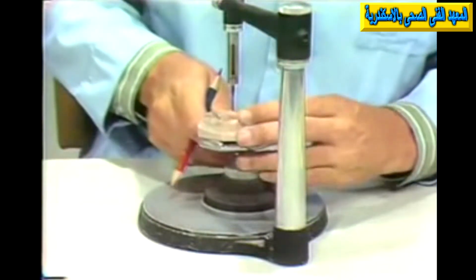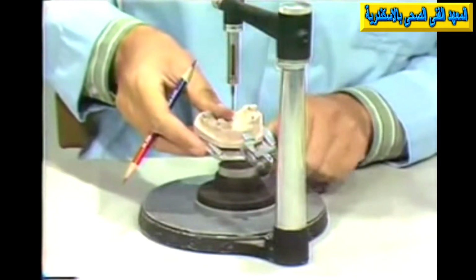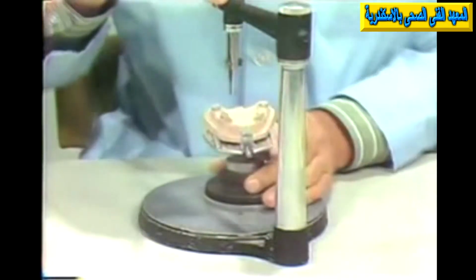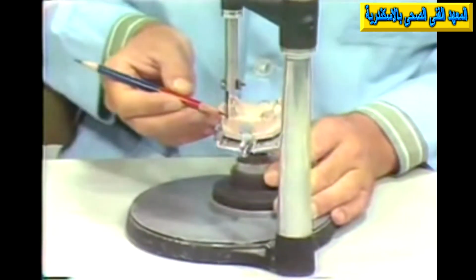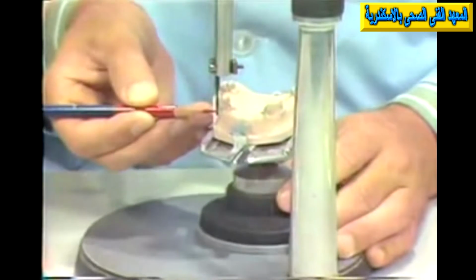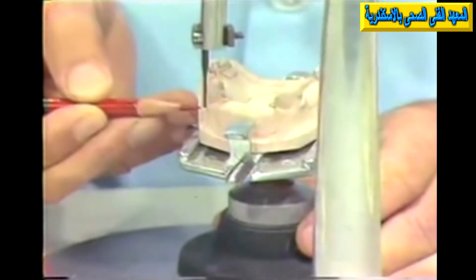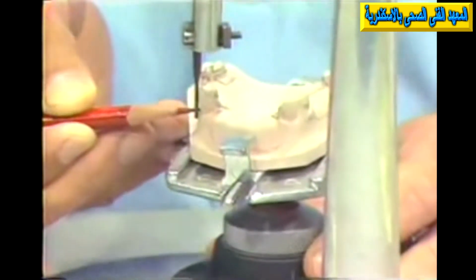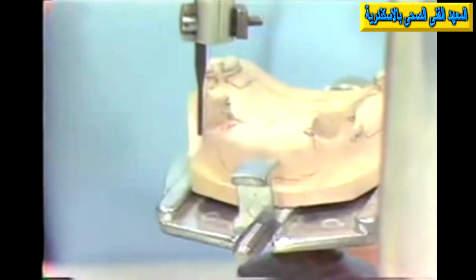Now, if we had to use that undercut in that path of insertion, we would have a disadvantage there. It might be possible for us, though, somehow to tip that cast so that we could choose perhaps another area. And this area might be more inconspicuously located. For instance, it might be possible for us to utilize a more distal area, possibly around the bulge of this tooth, approached maybe from the other direction, possibly from the distal, or approached high up on the soft tissue. We might be able to utilize some type of bar clasp or some other approach which would be less conspicuous. So in this regard, aesthetics, again, in placement of certain component parts, is important in choosing the path of insertion.